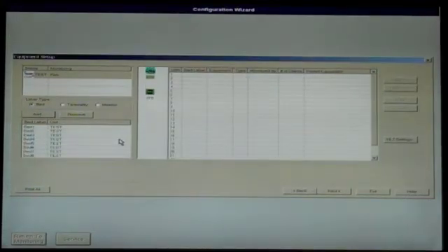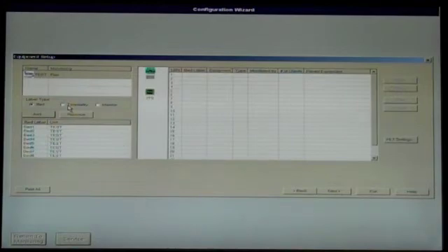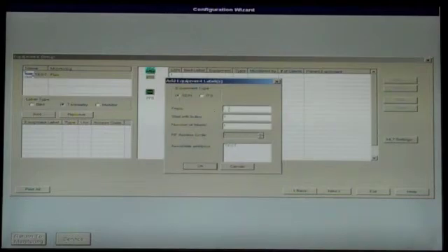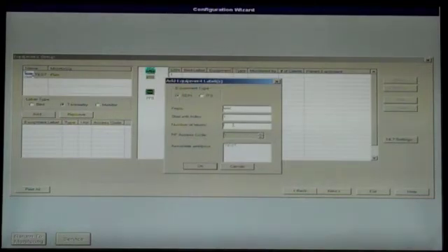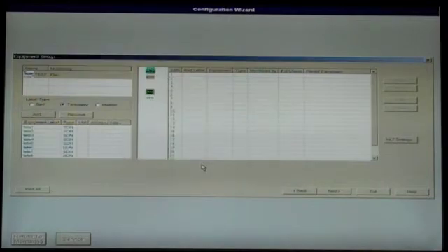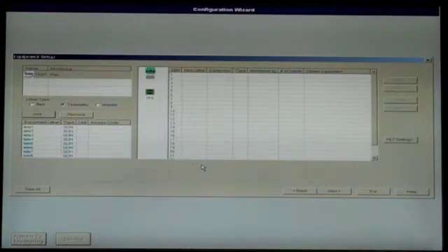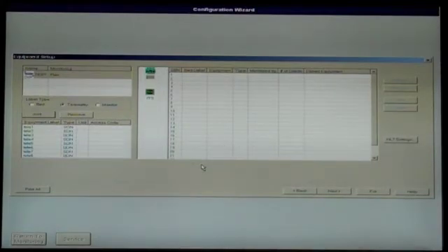Next, select Telemetry in the Label Type section. Click Add, then select SDN and follow the same procedures as adding beds, one at a time or in multiples. We will not be covering adding monitors in this guide. Consult the Phillips Telemetry System Installation Guide for the proper procedures.